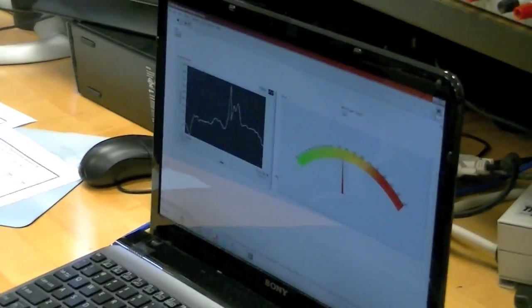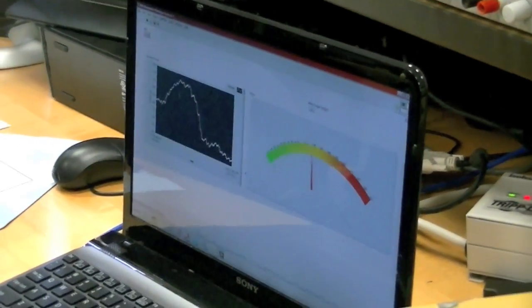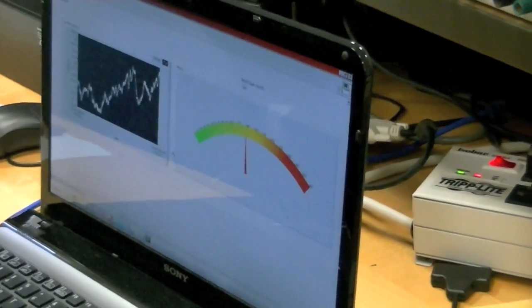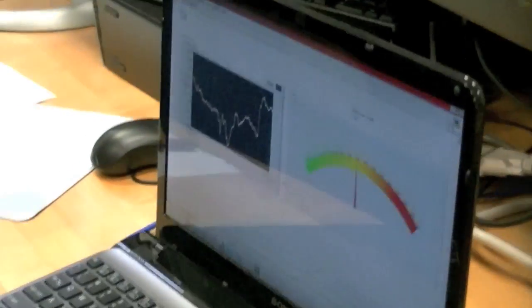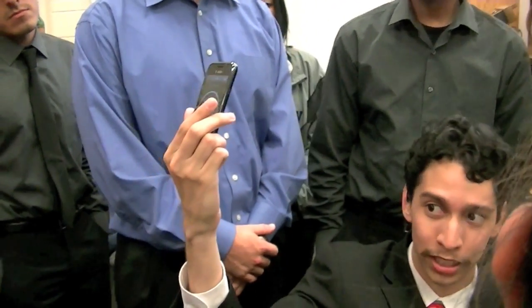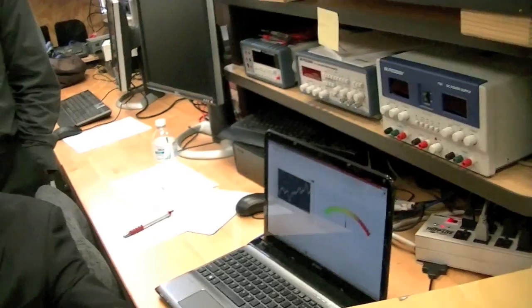There's a significant drop. The only thing we have to change is the calibration — it's not entirely calibrated yet, but as you can see the reading was going up from 160, and now there's a change. It's reading around 120. The goal is — if you look at this — it's monitoring on an Android phone as well. This kind of concept would be something like a wristband or a watch, where it would continuously monitor, and then all the results you see them right here. This is what your doctor would see when going in for a test.